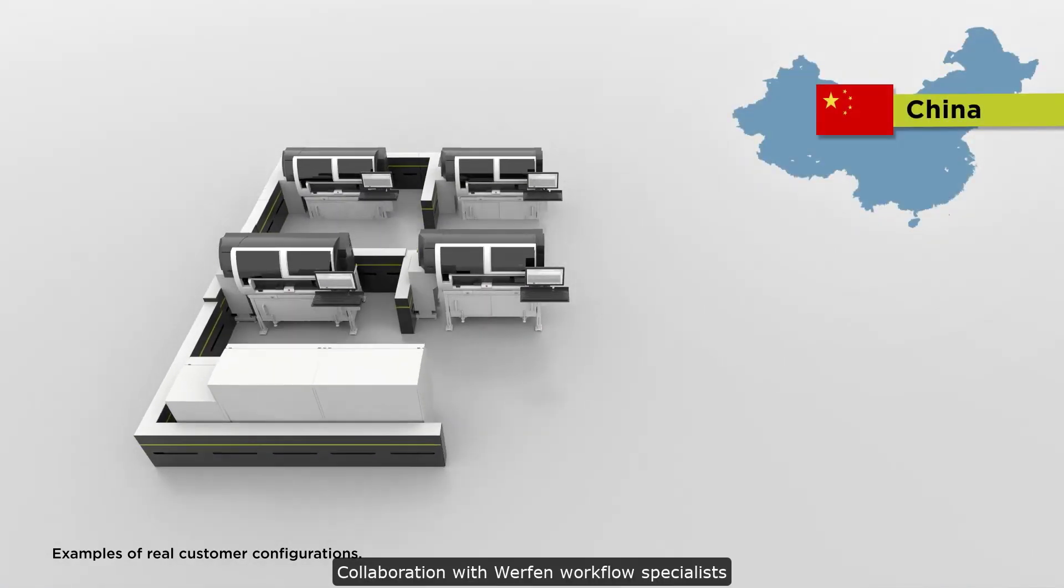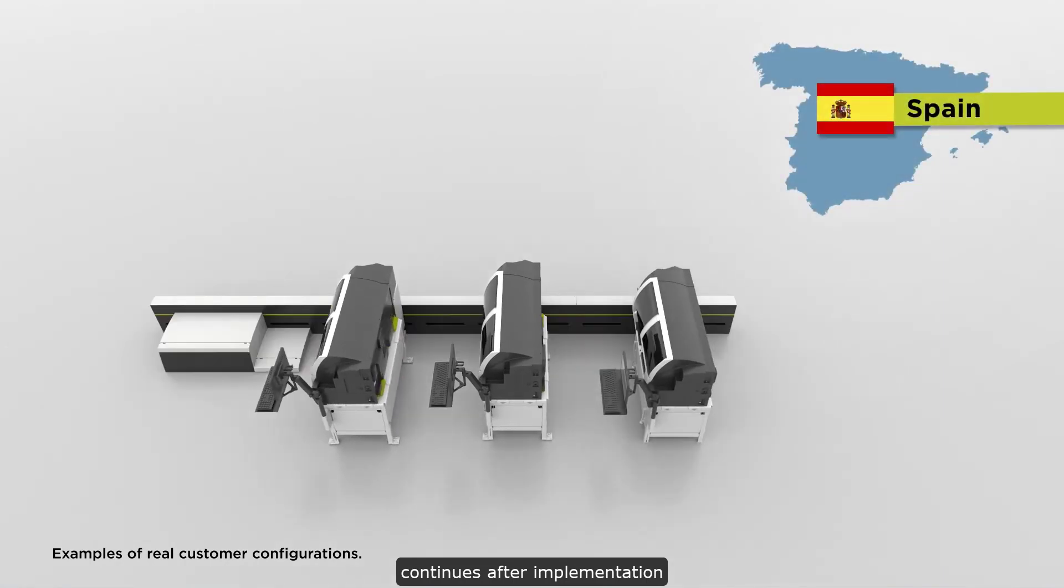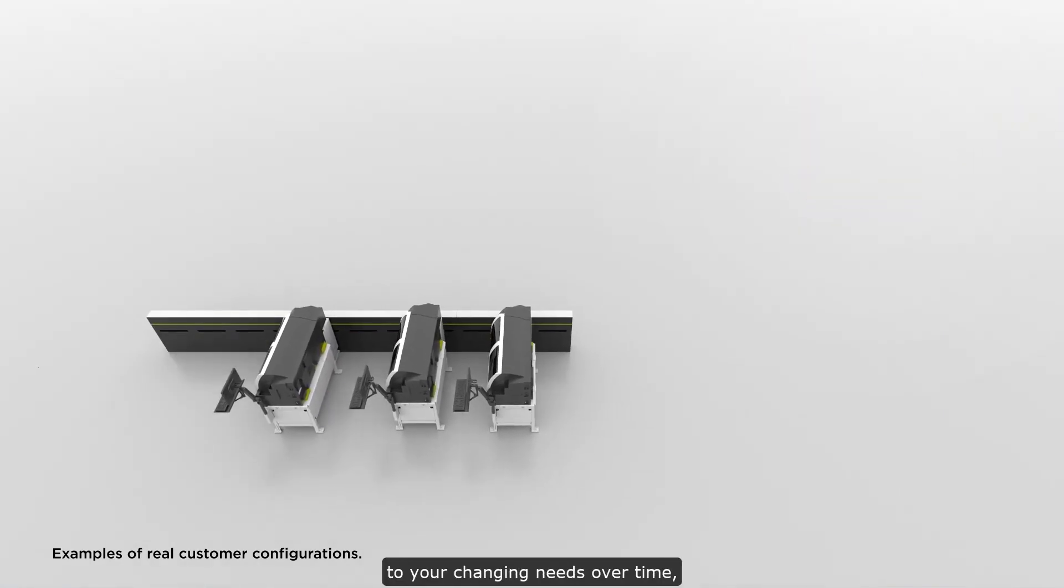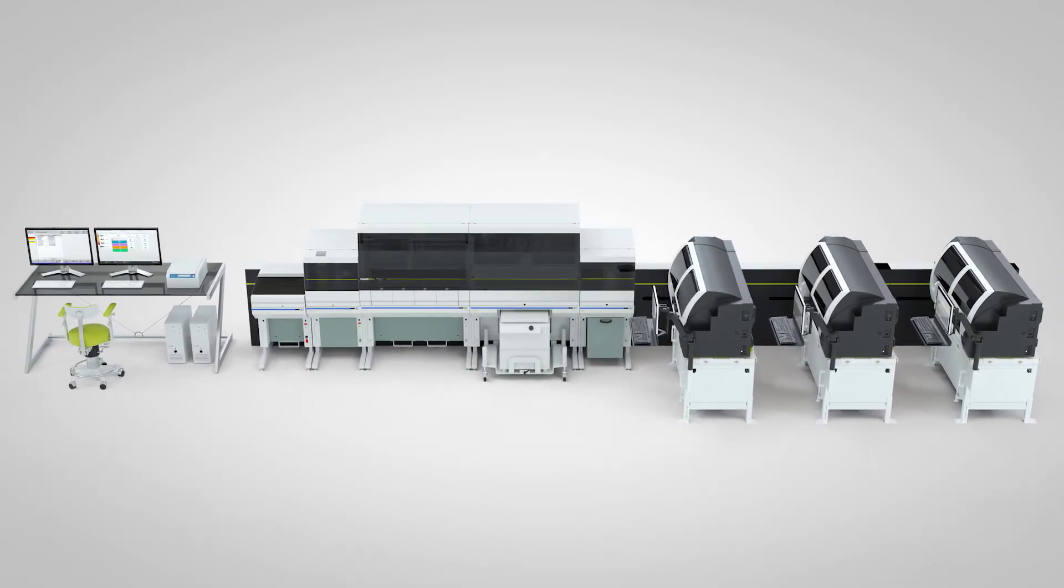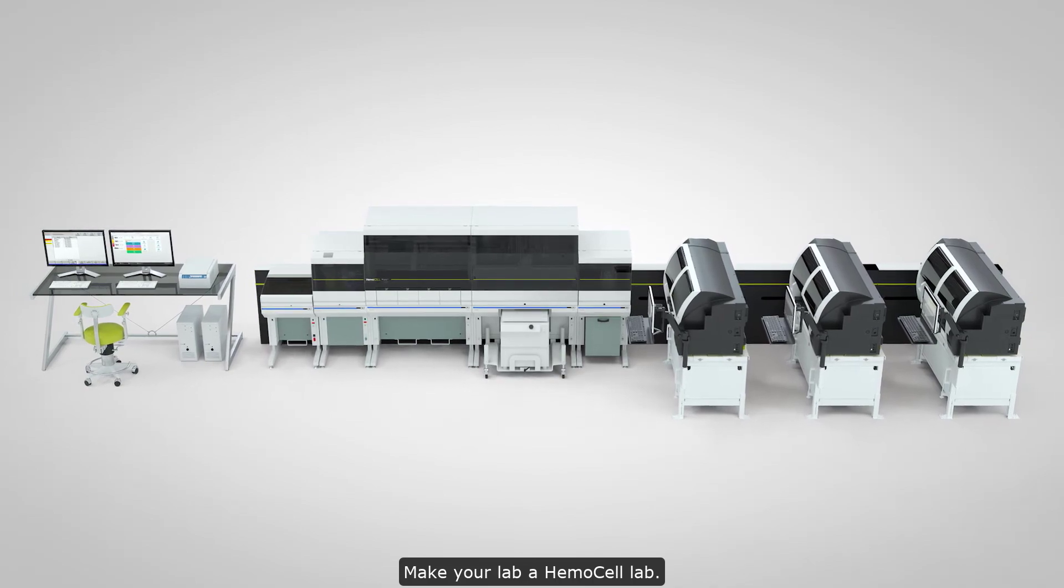Collaboration with workflow specialists continues after implementation to ensure the solution adapts to your changing needs over time, allowing your staff to focus on what matters most: excellence in patient care. Make your lab a HemoCell lab.